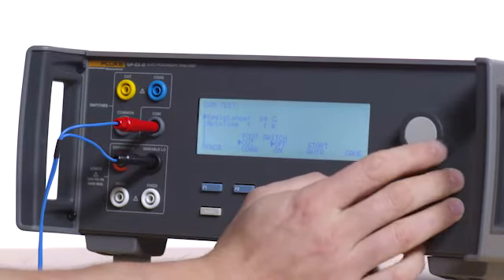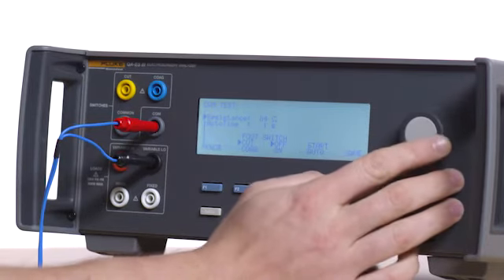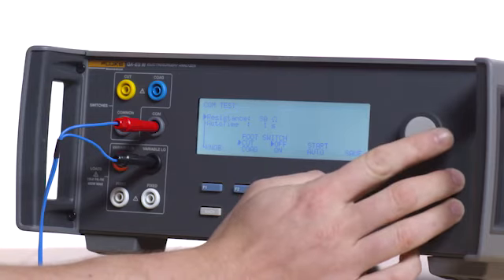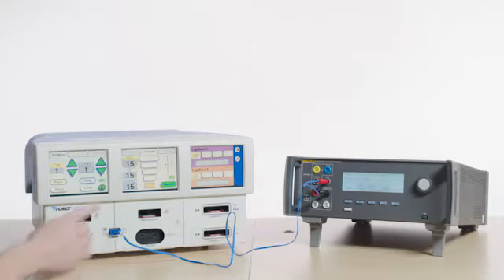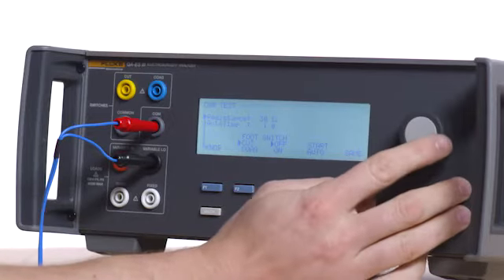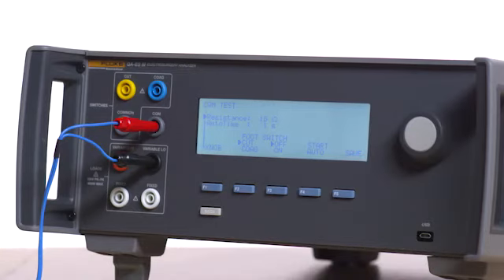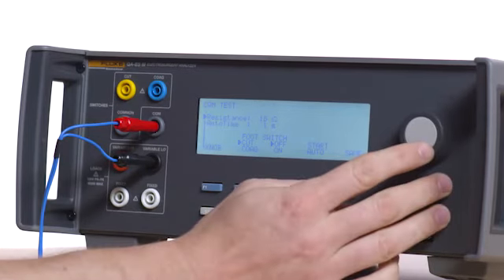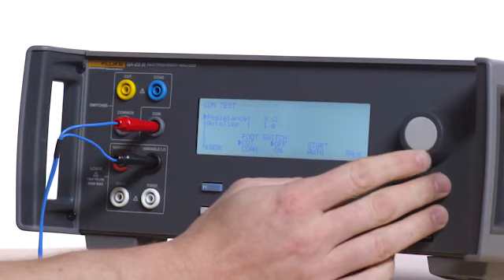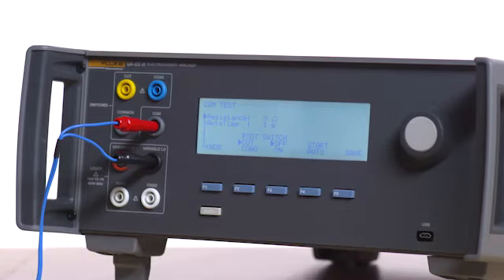Decrease the resistance to 30 ohms. Then decrease the resistance in 1 ohm increments until the REM alarm sounds. The alarm should sound before 1 ohm.